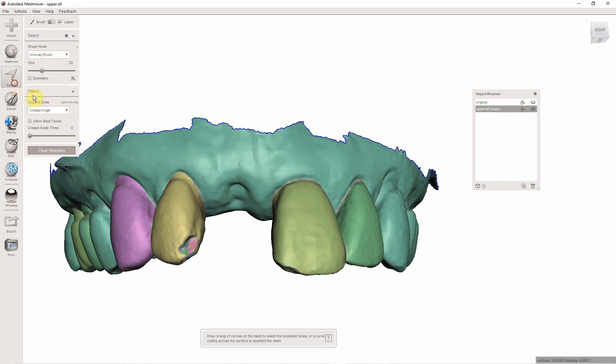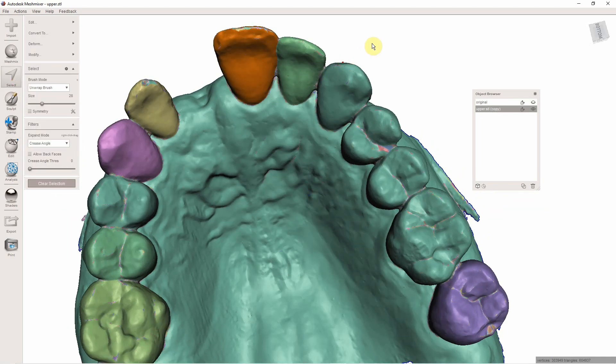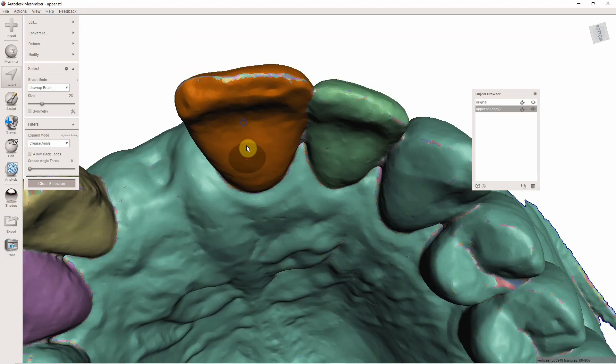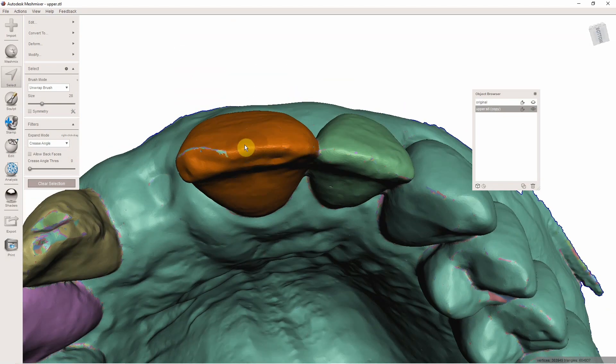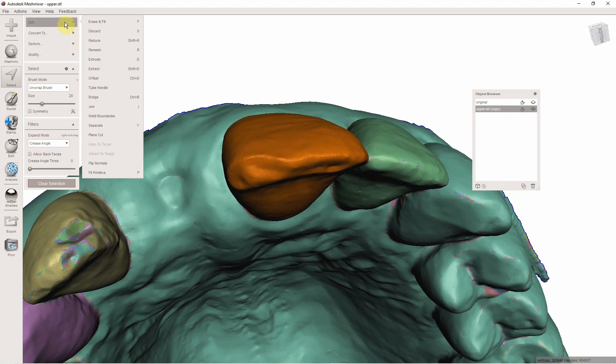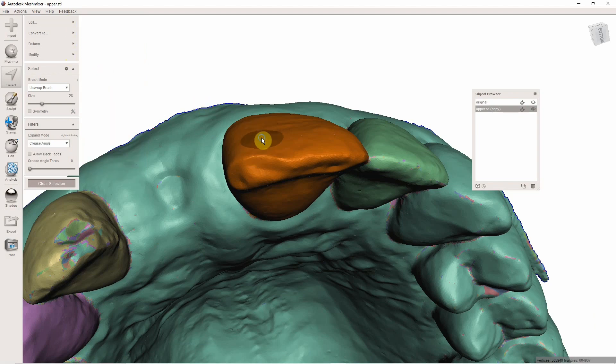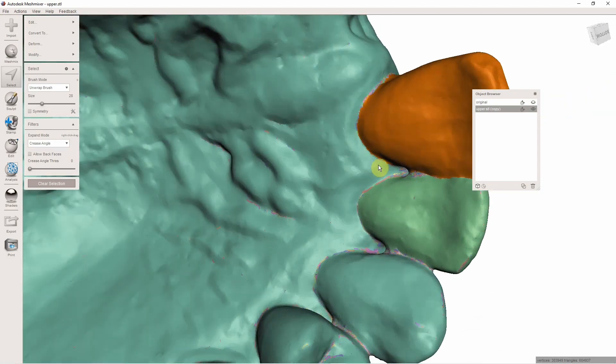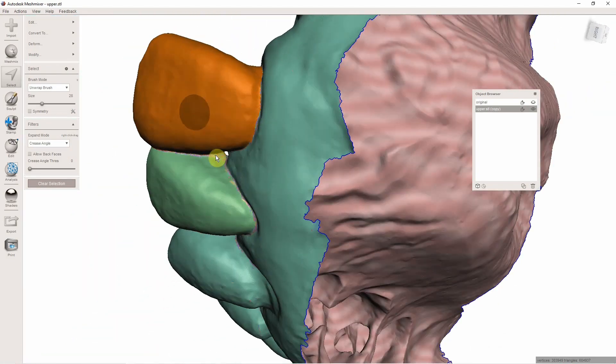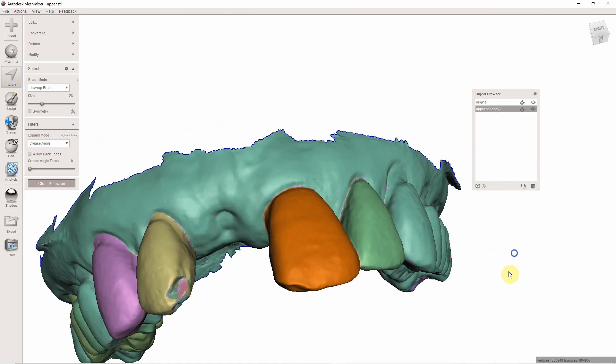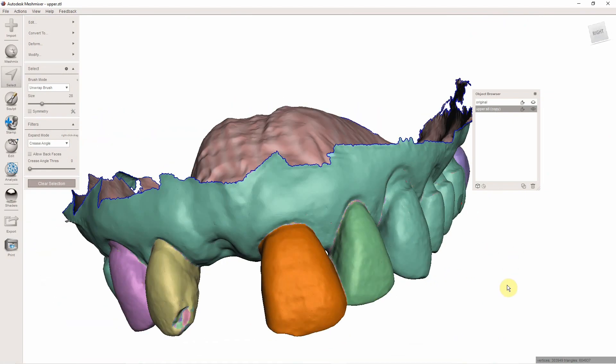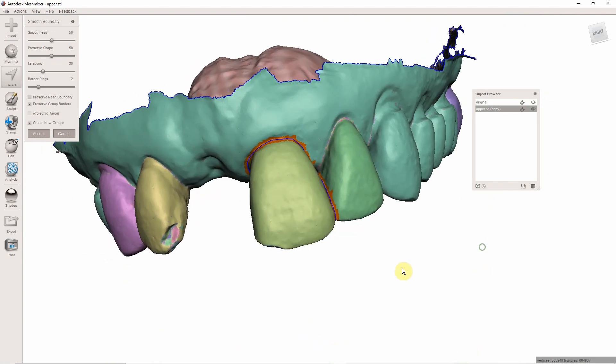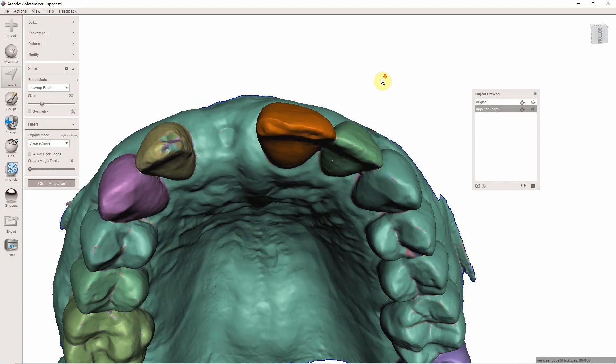So then I'm going to hit my select tool and double click that one tooth. And what I'm going to do is just come in here and paint what's missing. You could also go to Edit, Modify, Expand Ring, and it will start to fill in automatically there. You could see we've got a pretty good tooth selection here. I'm going to hit B to smooth that border. And this is where everybody got stuck last time - you kind of have to hit accept.